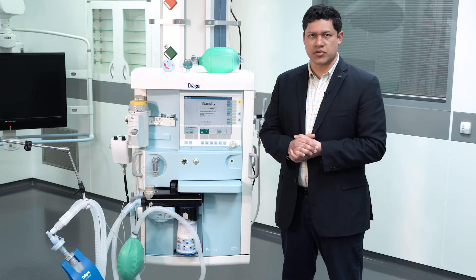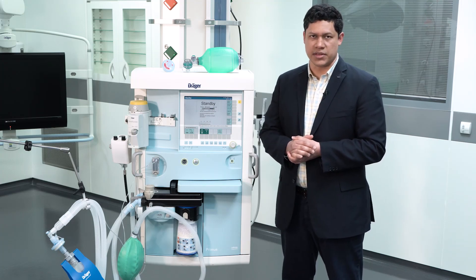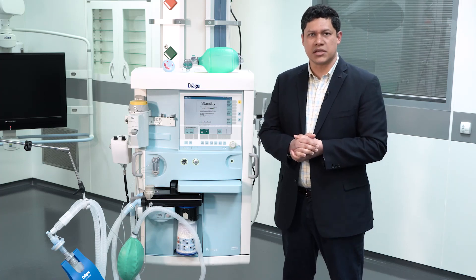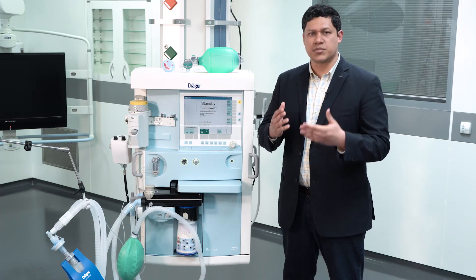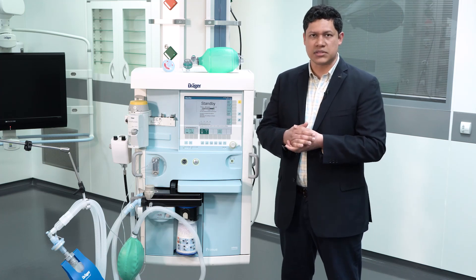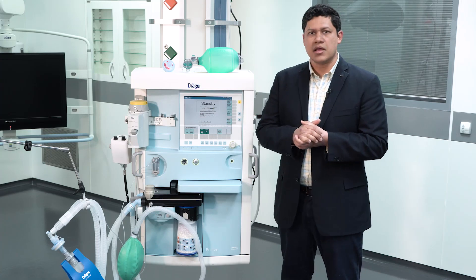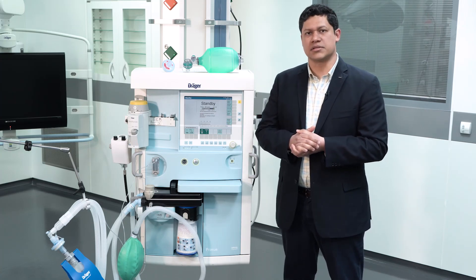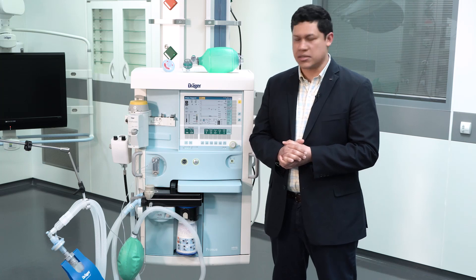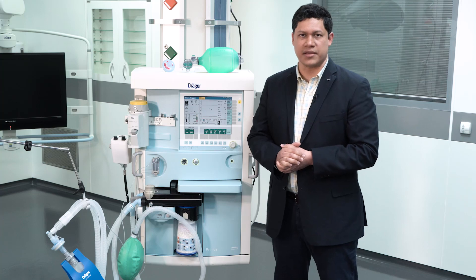Another important clarification comes with the use of pressure support ventilation. When using pressure support ventilation and the patient is not sufficiently spontaneously breathing to meet the set minimum frequency, the device will additionally supply non-triggered breaths. When the anesthesia device delivers these non-triggered breaths, you will see the apnea alarm ventilation message on the display.